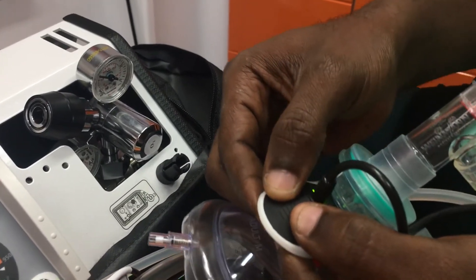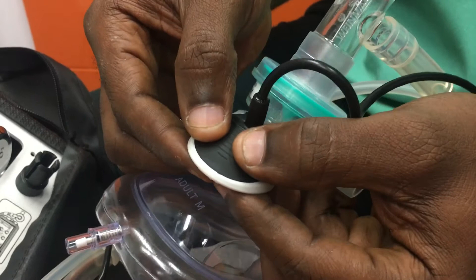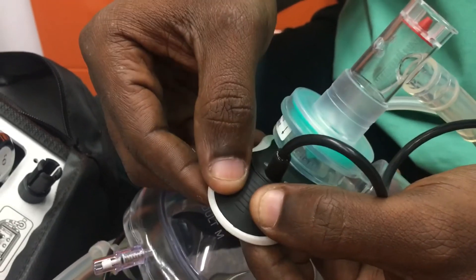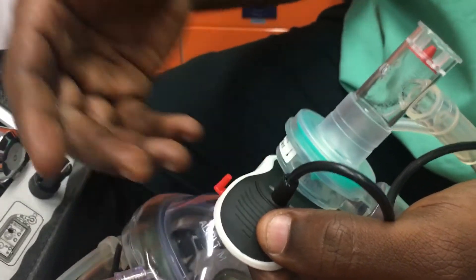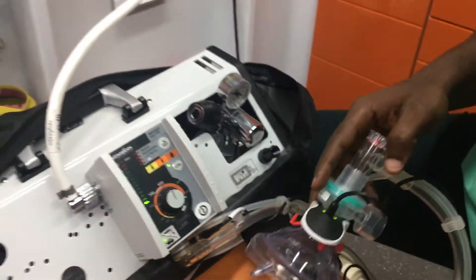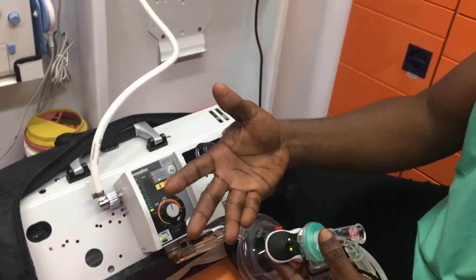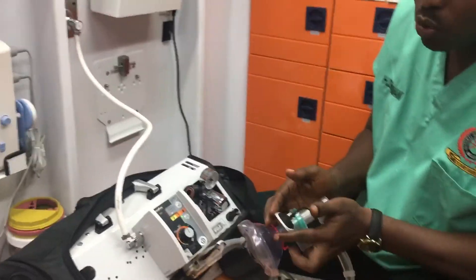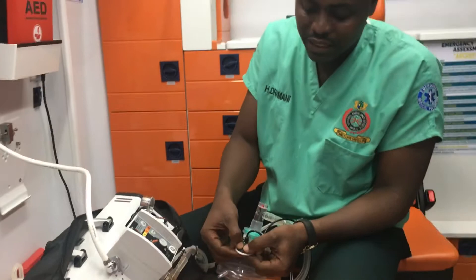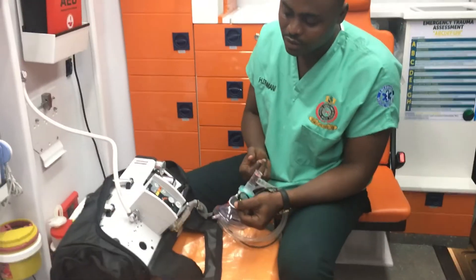Provide two ventilations: trigger for the first rescue breath — it lights up — then trigger for the second rescue breath. Then the other rescuer commences chest compressions for the next 30. After the 30 chest compressions, the one controlling the airway triggers this side two times to give two rescue breaths.